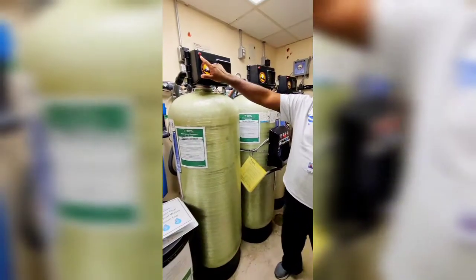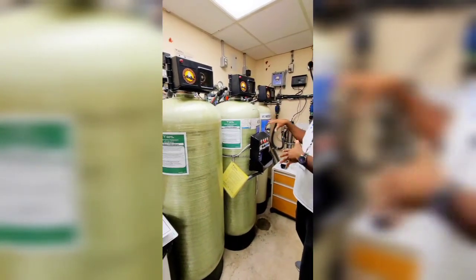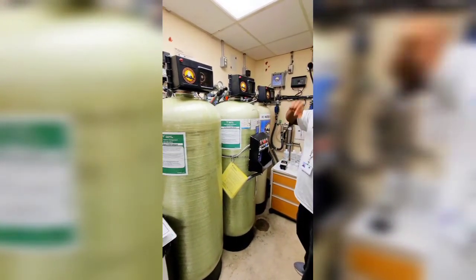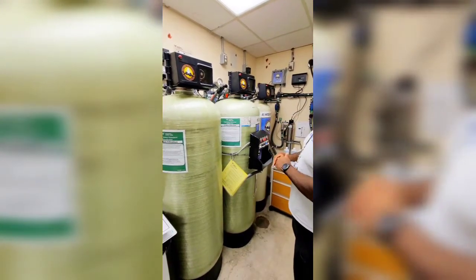This red light will come on when that happens. Usually we're not functioning in the middle of the night — not using the water system. You gotta use the portable RO. But that's just what they do every other night.